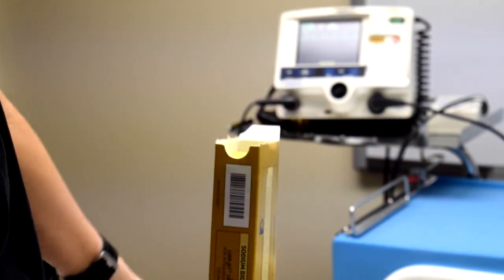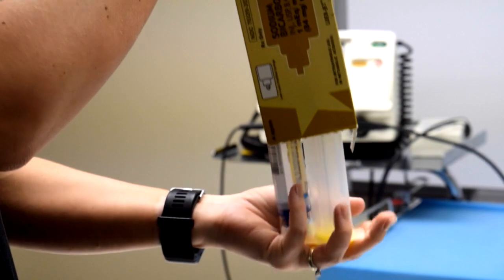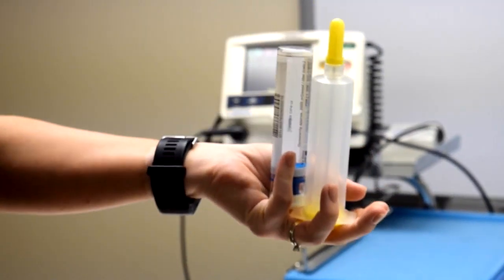Then I just tip it over, kind of give it a little shake, and then both of my pieces come out.